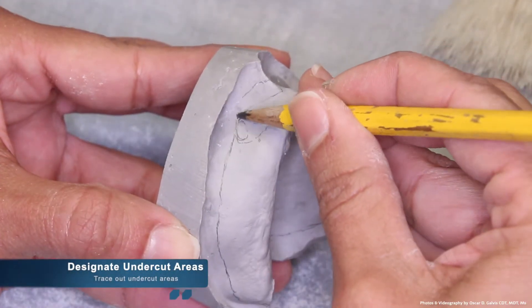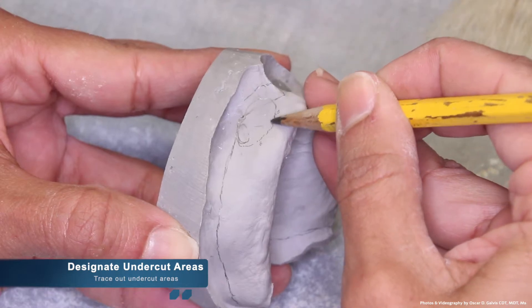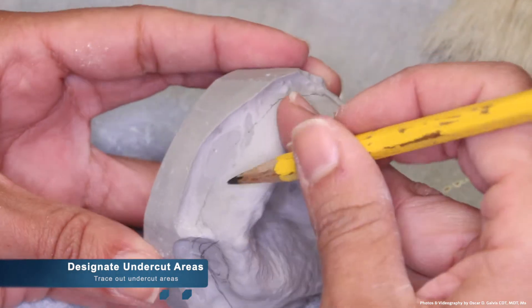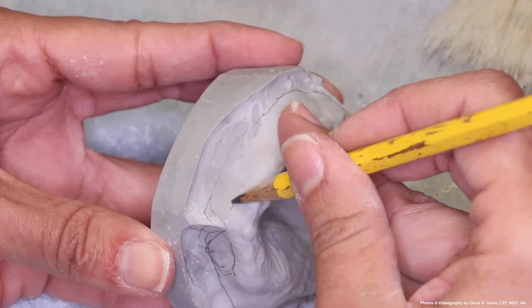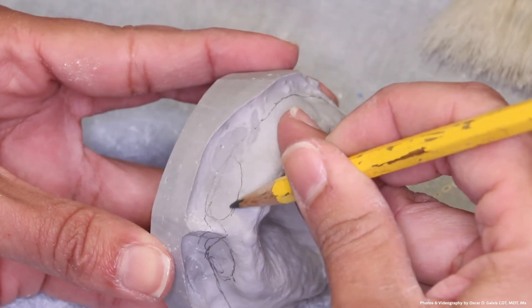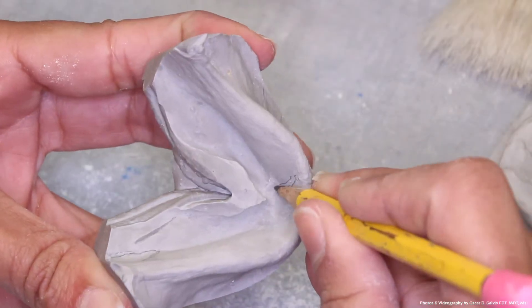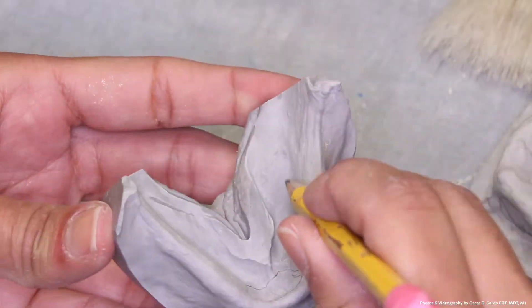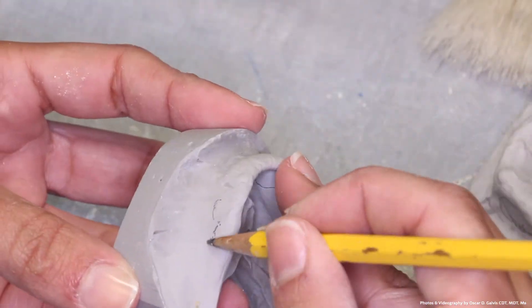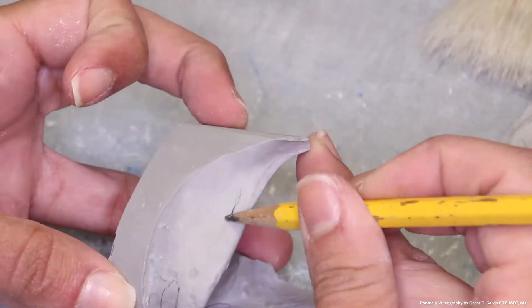Designate all of your undercut areas. You can do so practicing the same technique seen in the photo previously. By holding a flat surface perpendicular to any height of contours in reference to the path of placement, any space that occurs underneath those areas are undercuts.